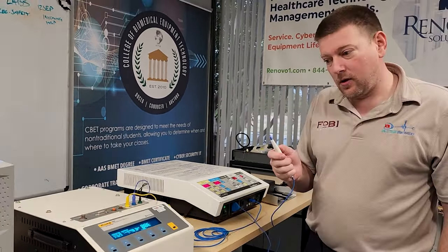Taking it down one more time to 15 watts on both bipolar cut and coag. The unit shows 15, 15, 15. Running bipolar coag at 15 watts: I get 13.5 — very consistent. Bipolar cut at 15 watts: 14 watts out. This unit is absolutely fine on bipolar. We're not running through every single step of the full protocol here, just verifying quickly that this machine is technically safe.